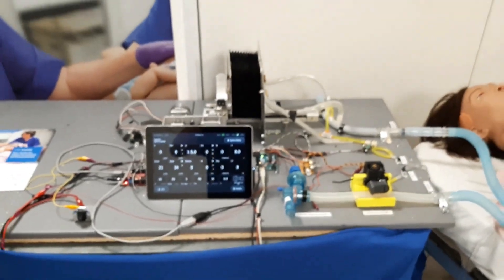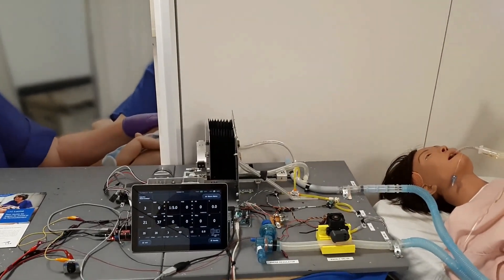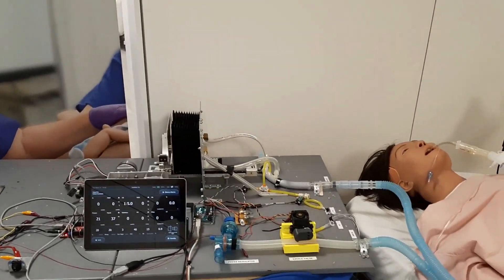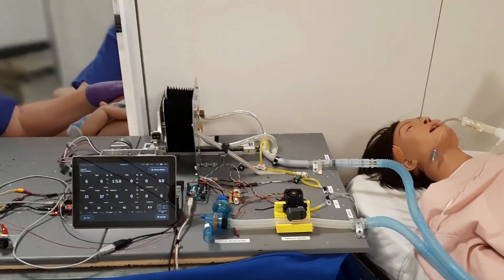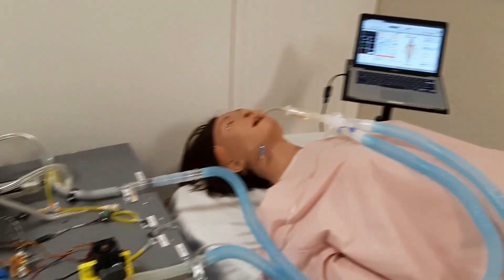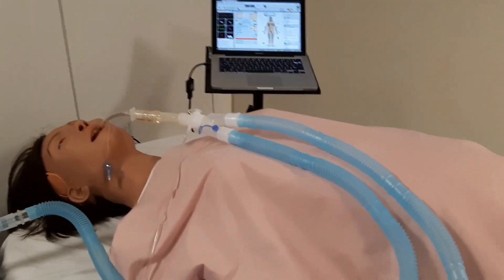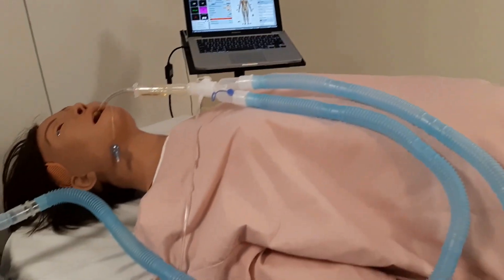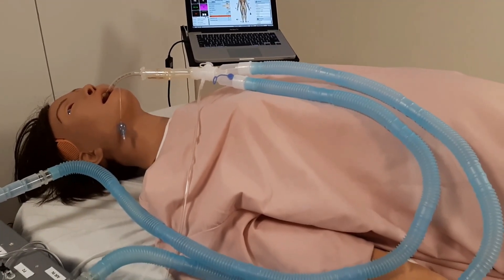The pressure generation mechanism activates, pushing air to the patient. Looking back at the patient, there's now a visible chest rise and fall.